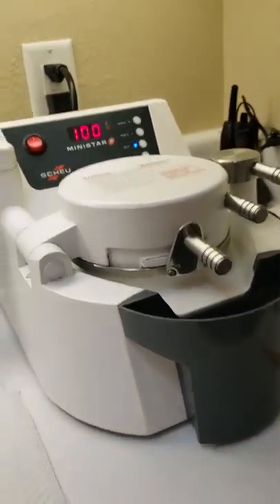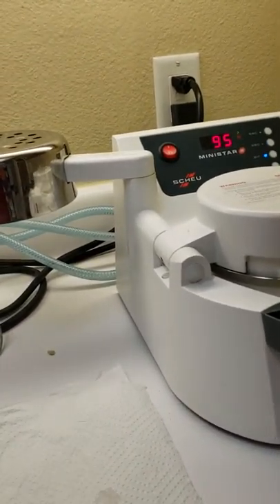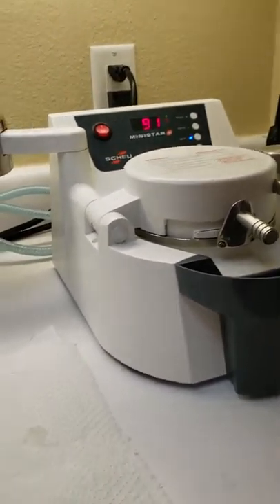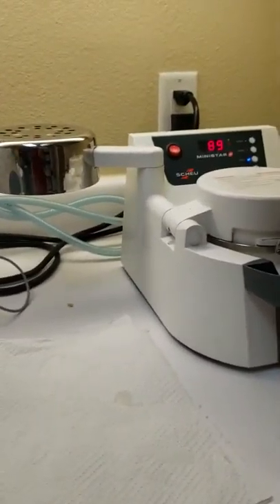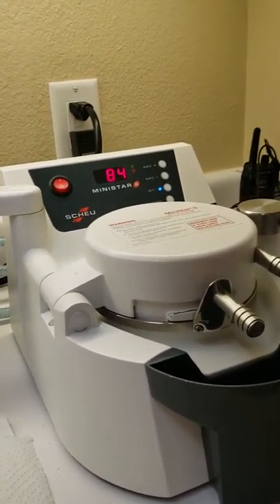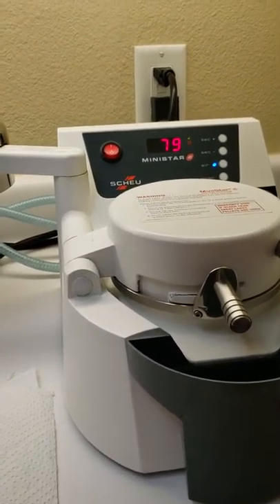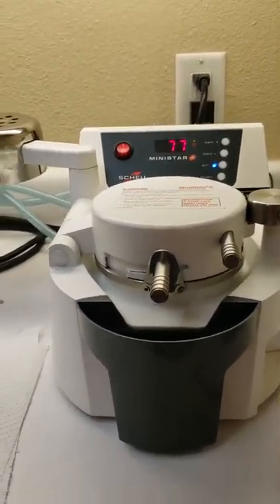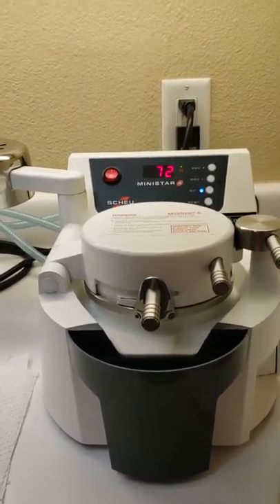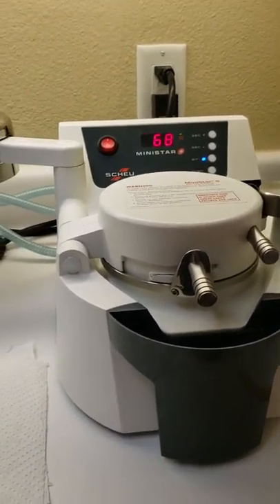If you're making an Invisalign retainer, you'd want to add an additional five seconds to your heat time. That allows the material to stretch just a little bit more overall, making the retainer tighter. For an Invisalign retainer, you also don't want to do much blocking out at all — unless you have a void, hole, or air bubble in the model that needs to be sealed, because you want the Invisalign retainer to be as tight as possible.